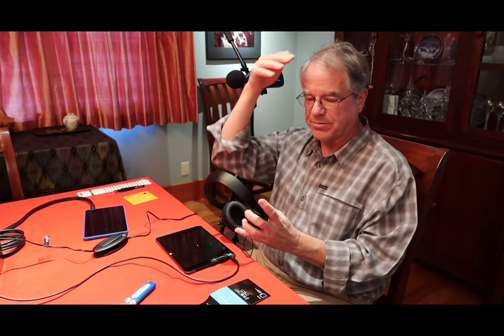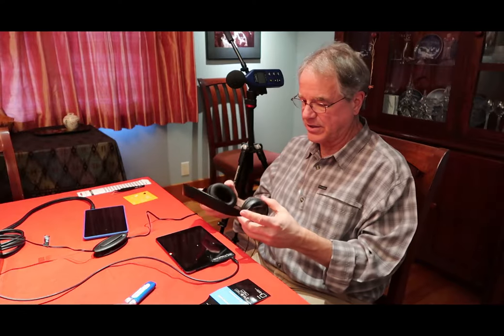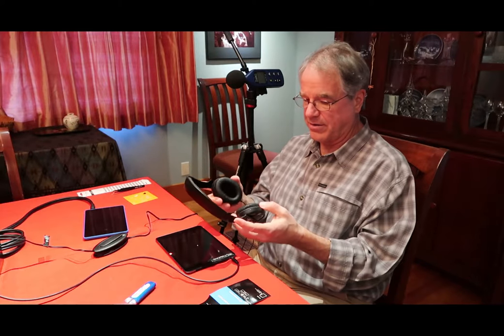These Sennheisers have pretty good foam lining and they do a good job of fitting over my large ears, so they should fit over a kid's ears pretty well. I've heard that on infants this is probably too large, and that sticking a sponge or something in between kind of props it up on the kid's head and they can hear a little bit better that way.